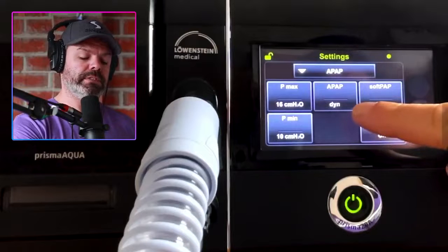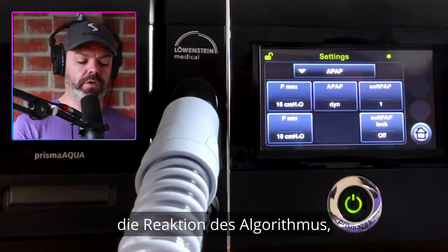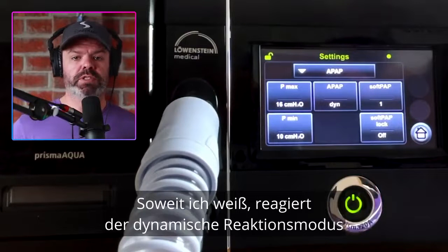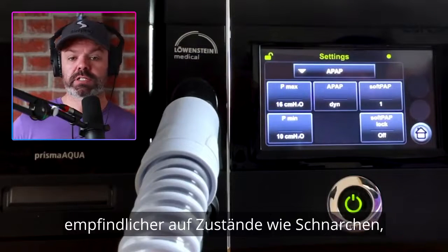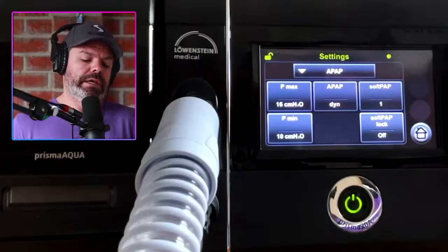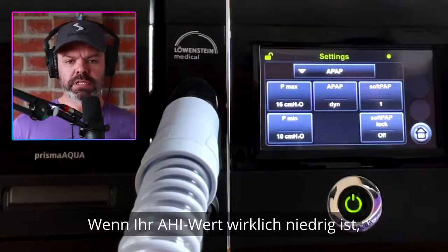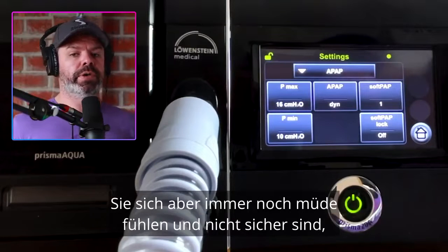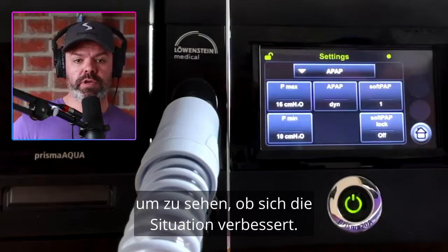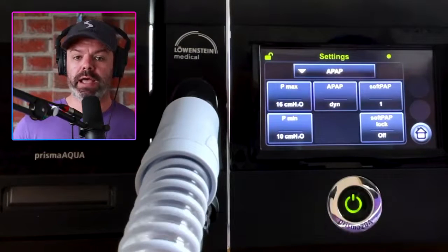Here in the middle, we can change the algorithm — the response of the algorithm — standard and dynamic. The dynamic response mode has a higher sensitivity to conditions like snoring, airflow limitation, upper airway resistance syndrome, and so on. My advice would be to start in standard mode. If your AHI is really low but you're still feeling tired and not sure what's going on, it's probably worthwhile trying dynamic mode to see if things improve. It's very easy to change a mode and see what happens.